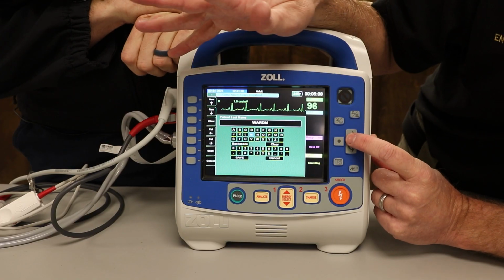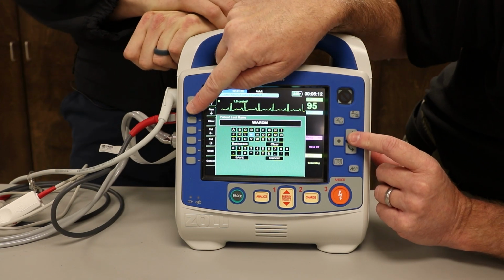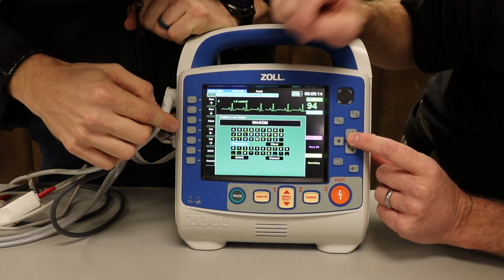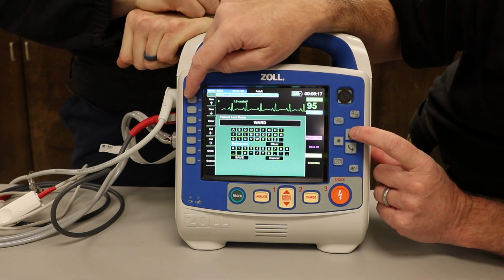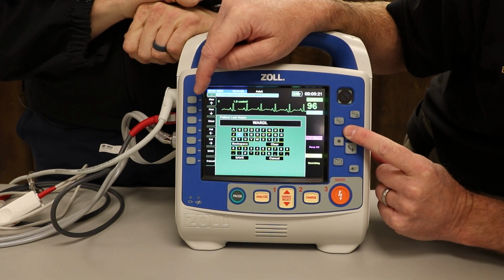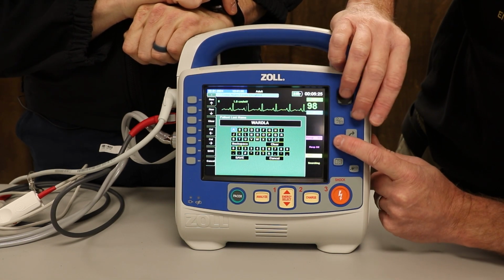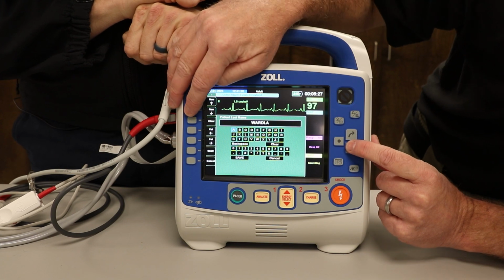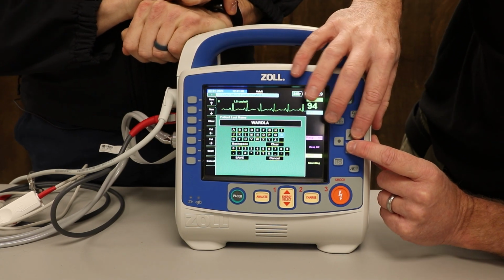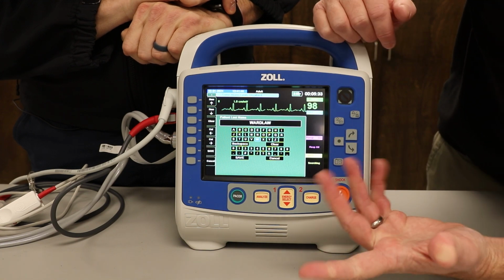Oops. What happens if I make a mess? Uh-oh. Well, what's the easiest way to fix it? You can backspace. There we go. Bam. Like I said, I can actually push all these buttons, but look how long it takes me. I have seen people in the heat of the moment, when their patient's really sick, just going to town. But that's fine. Now, what do I do when I get here?